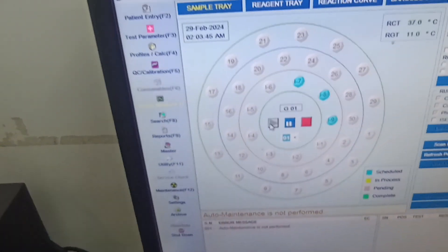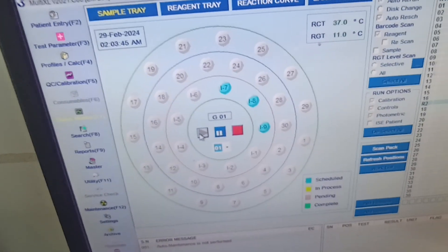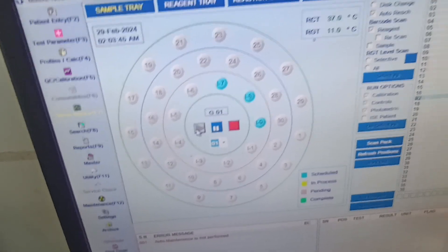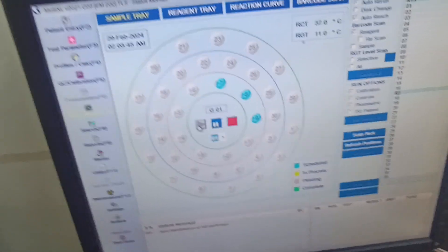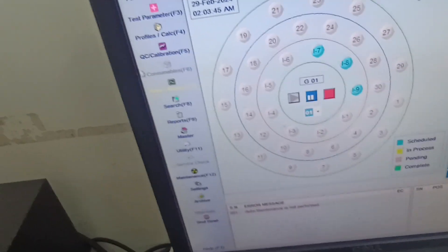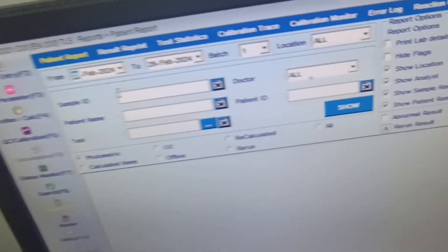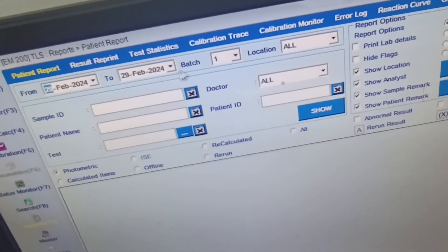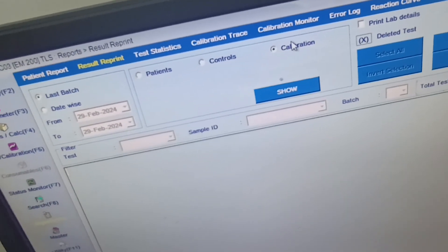During the procedure, the factor will be changed. After calibration, the success of the calibration will be measured by the control. The final result will appear on the screen — you can also see the free result in this window and view the calibration result.